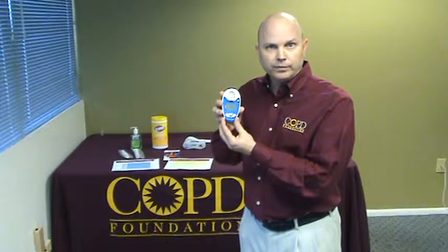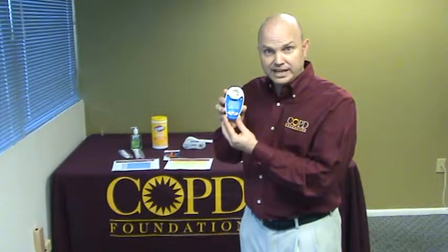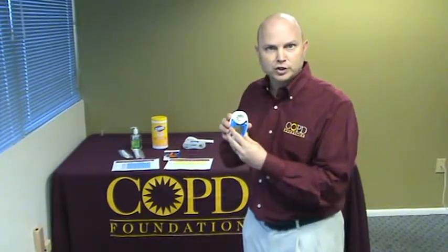The only value of concern is going to be the peak expiratory flow. In our protocol, we have preset tables based on an individual's height, ethnicity, and gender category. Those individuals who have less than 70 percent peak flow will move on to the next station, which is spirometry screening.